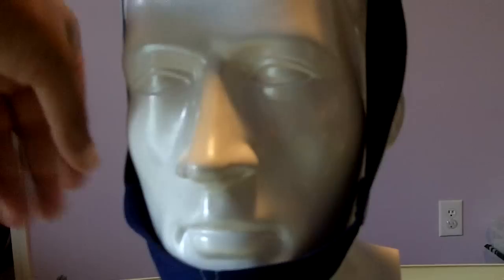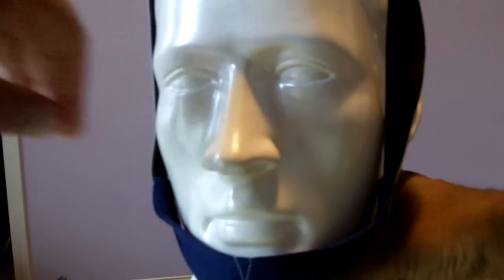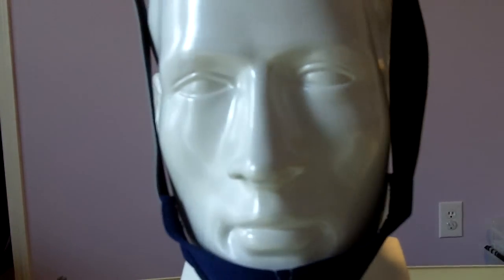You have to be careful that you don't have this chin strap covering your mouth or going here at your voice box, your larynx. It should sit comfortably underneath here. Please keep that in mind.